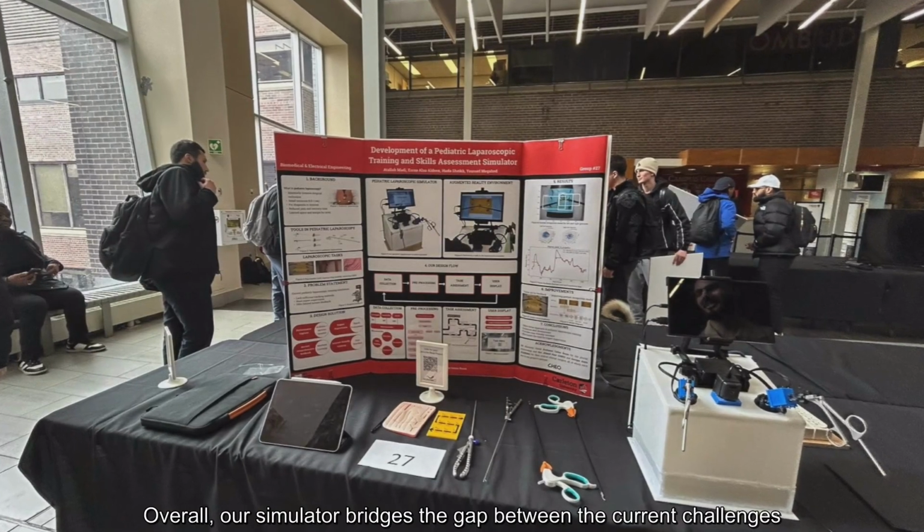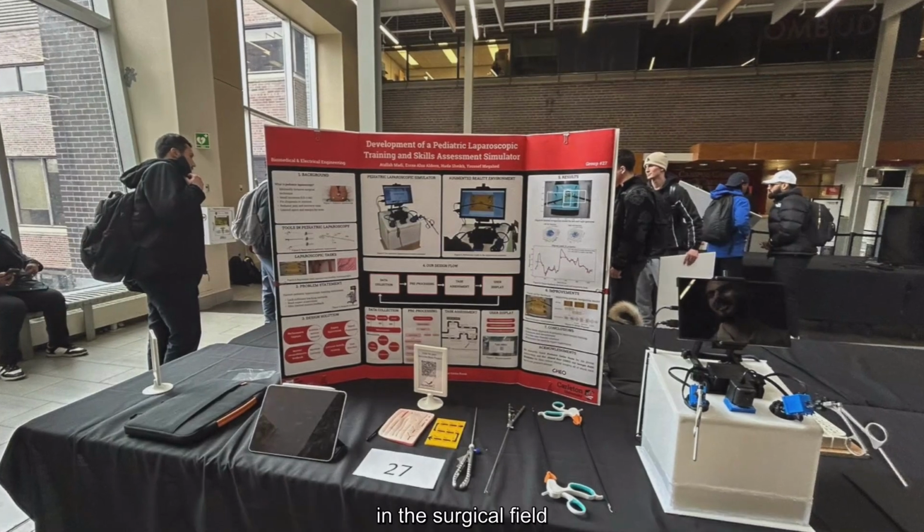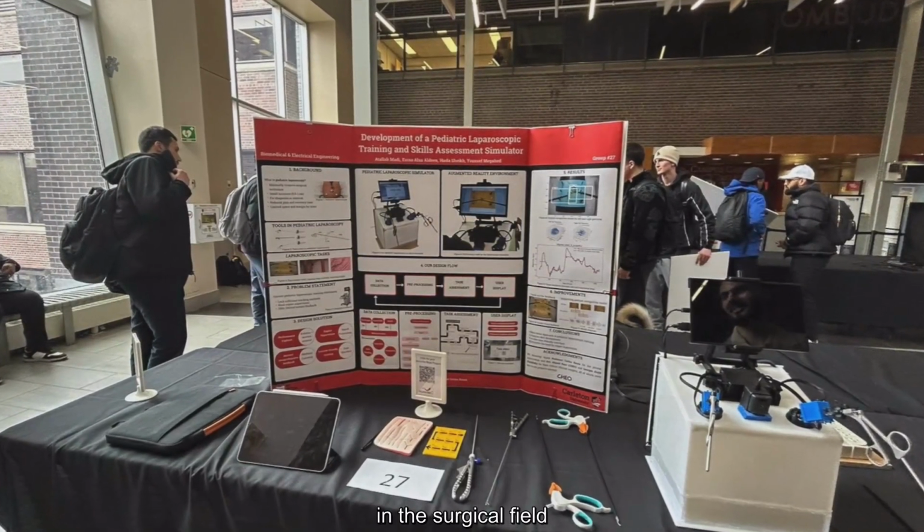Overall, our simulator bridges the gap between the current challenges in the surgical field and the growing demand for modern training evaluations.